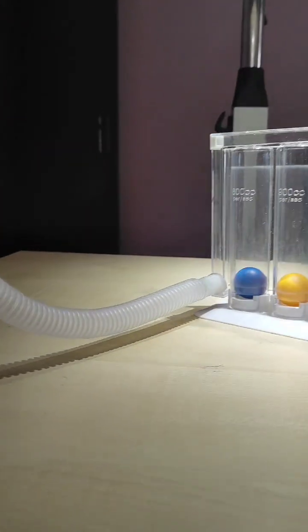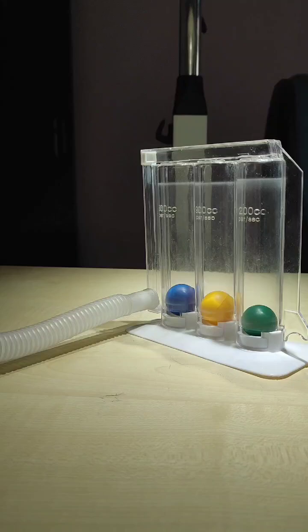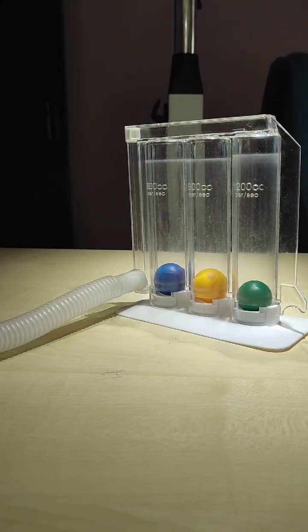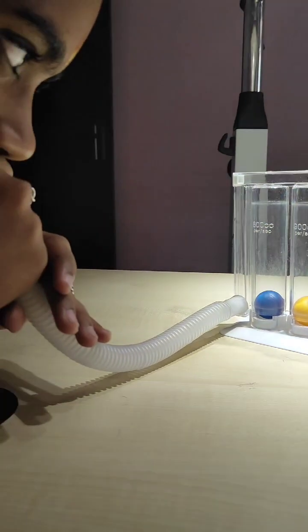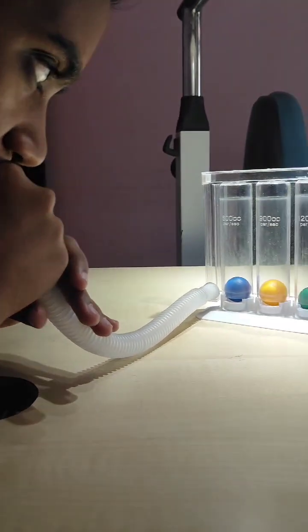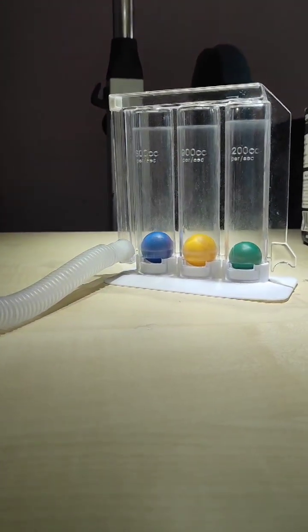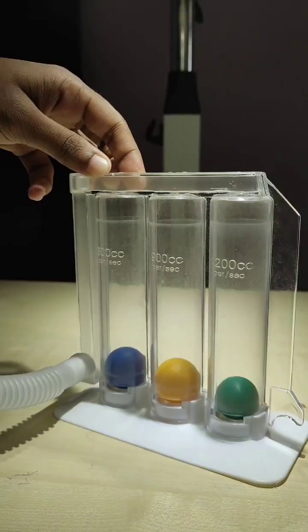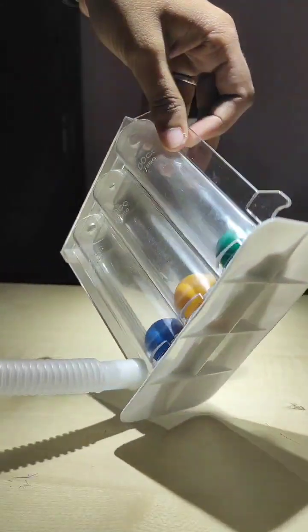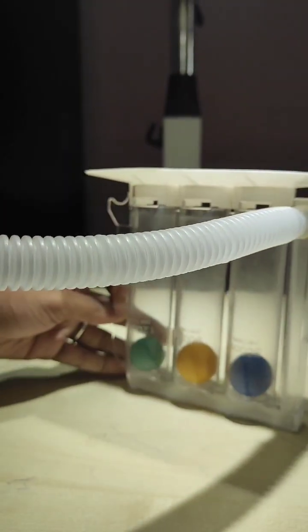When using the Respirometer, always hold it upright for inhalation. This ensures accurate airflow measurement and helps your lungs expand fully. Take a deep breath in and try to raise the indicator as high as you can.